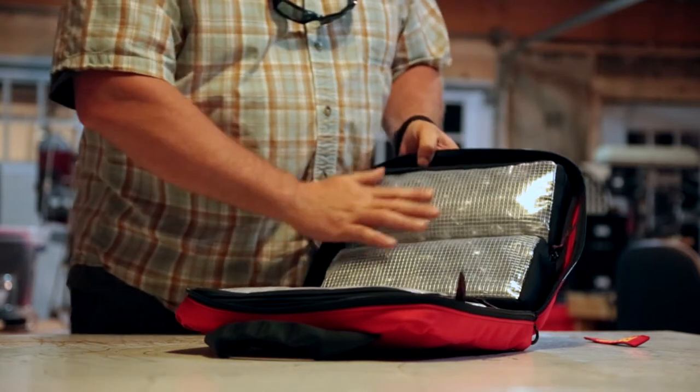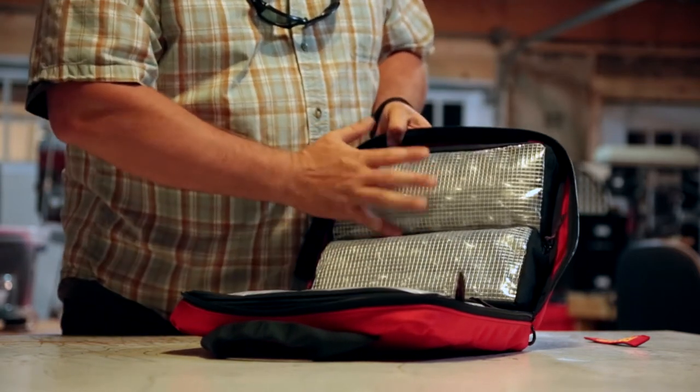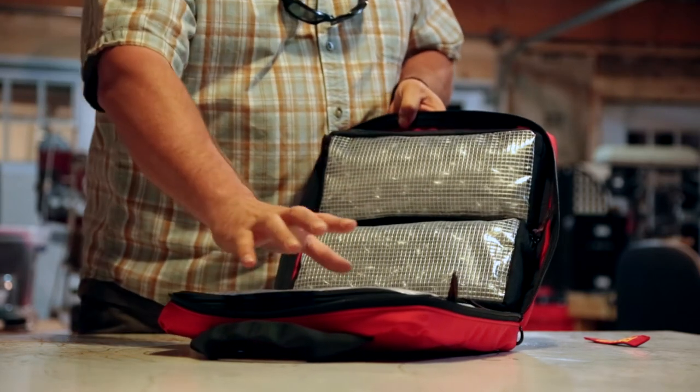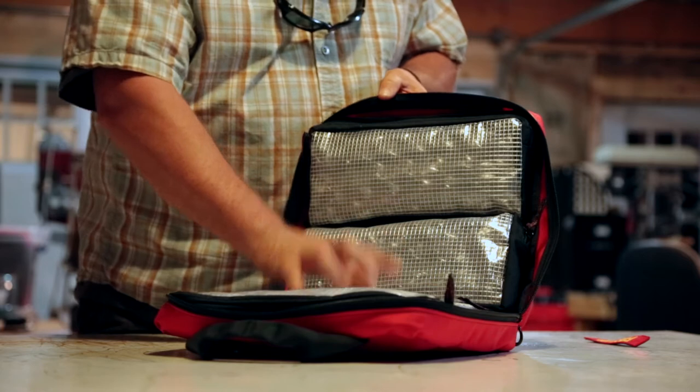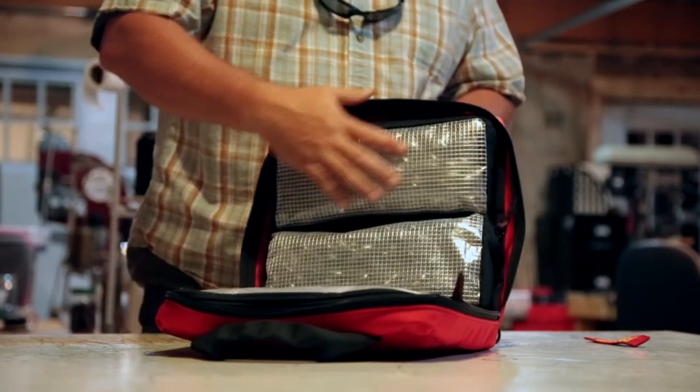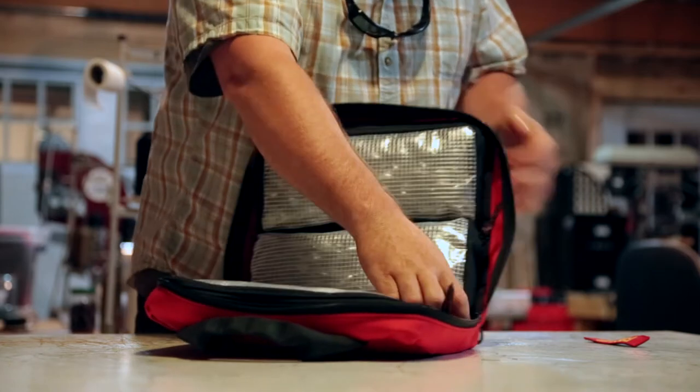Open on the inside, we've got four pouches. Each one of these pouches is six inches by twelve inches, so it's actually kind of similar to our tool bag, other than the fact that the pouches are a little bit bigger. You can individually kit out each one — here's sort of trauma stuff, here is blood stopping stuff, here's miscellaneous first aid.